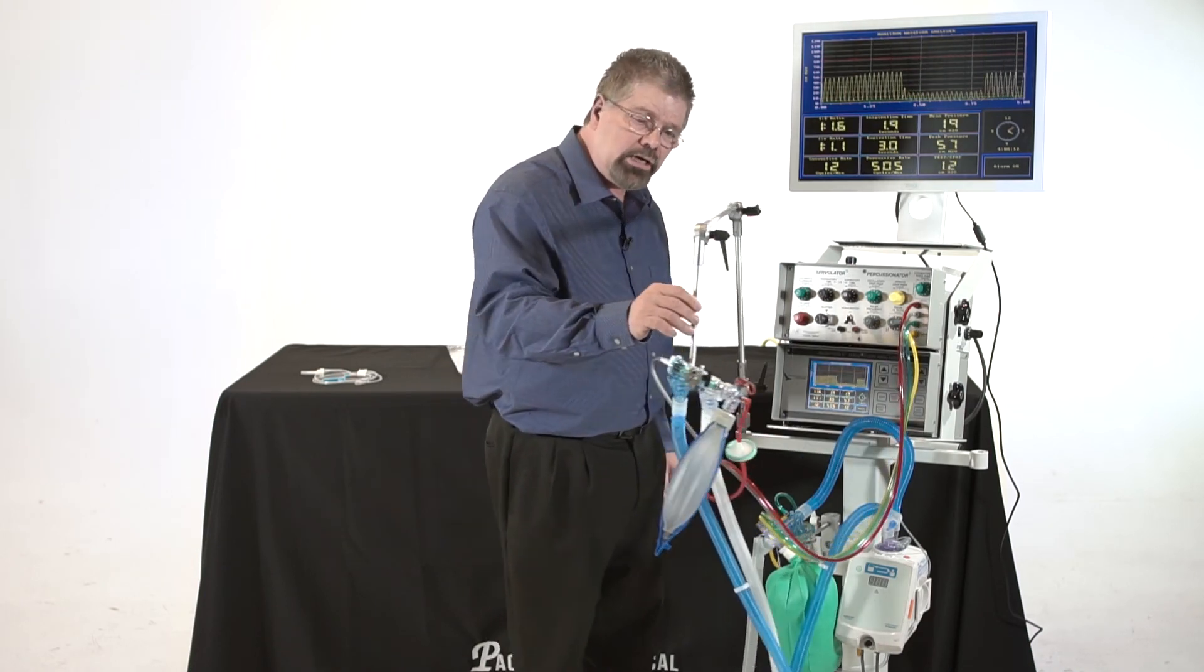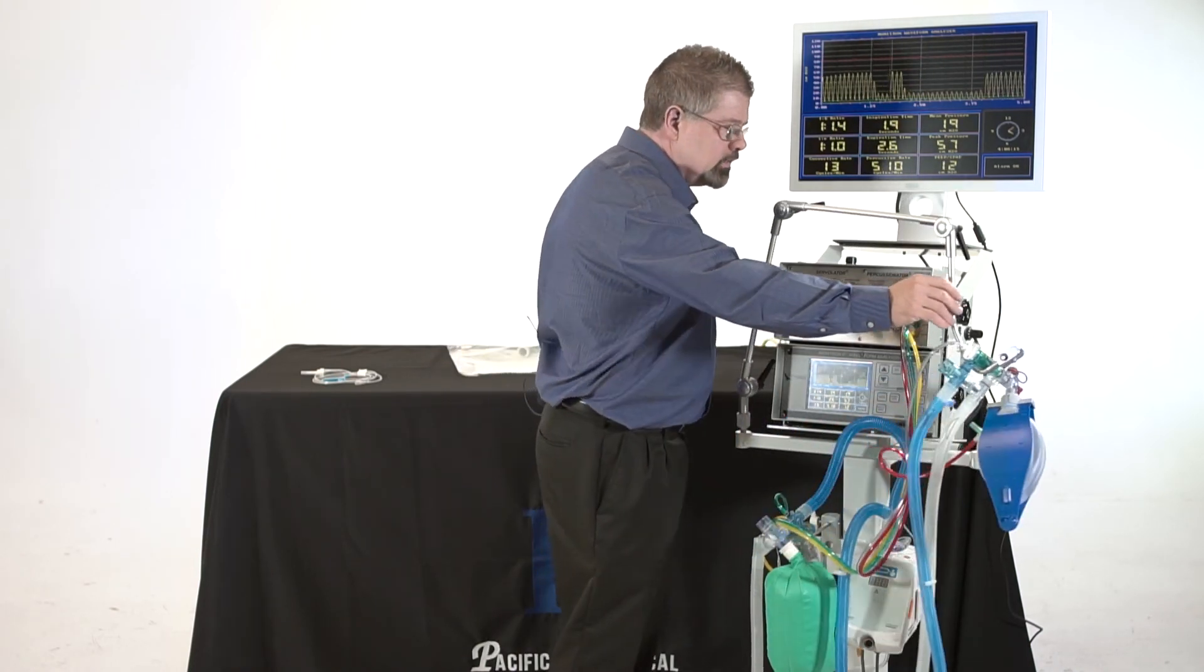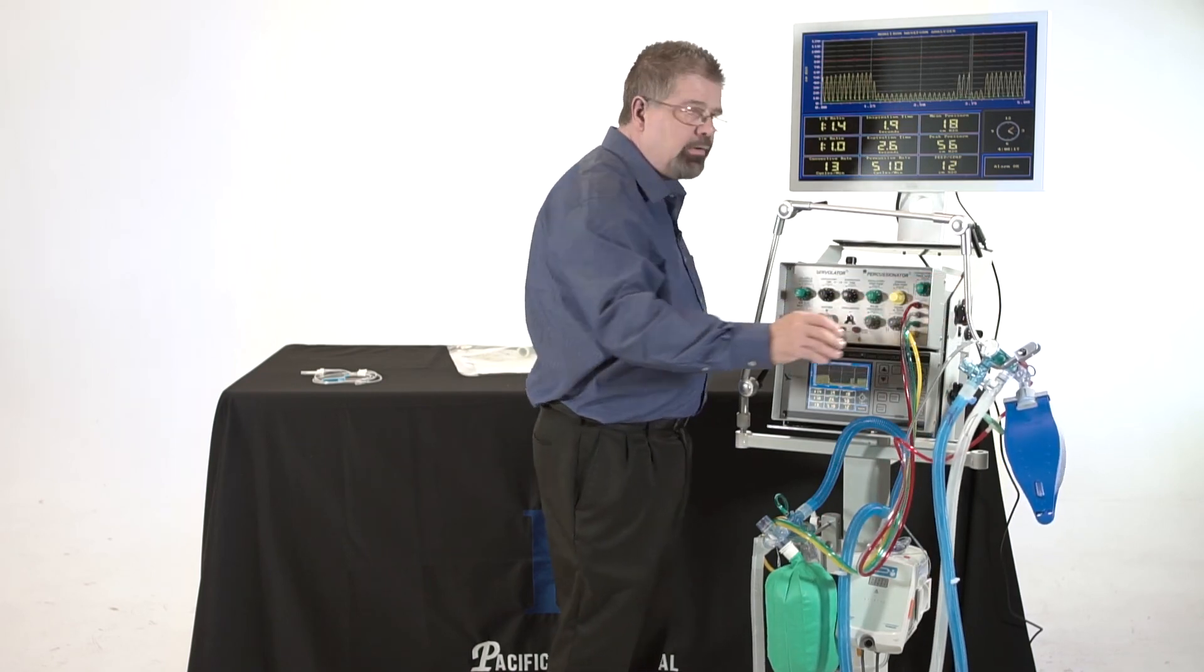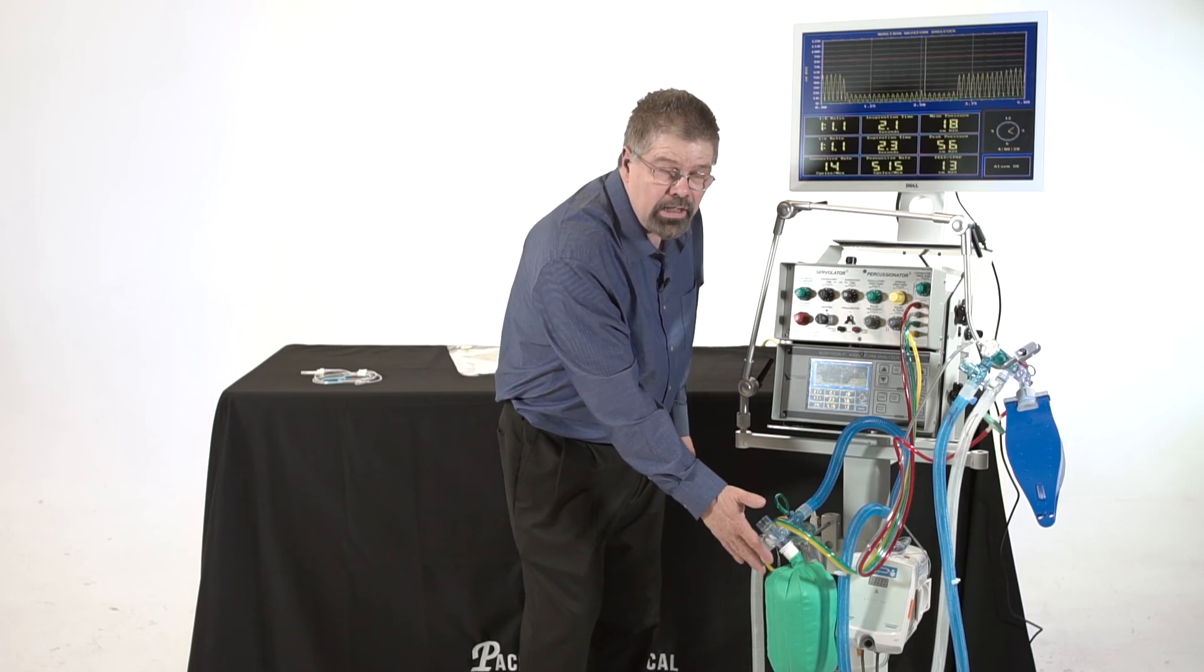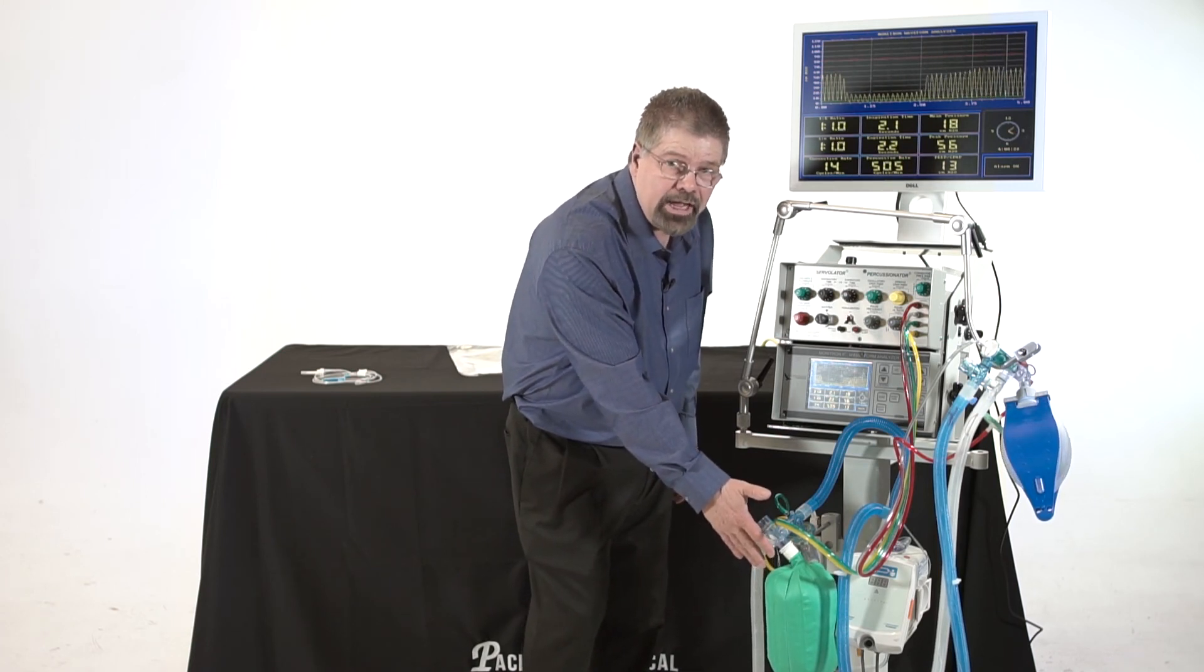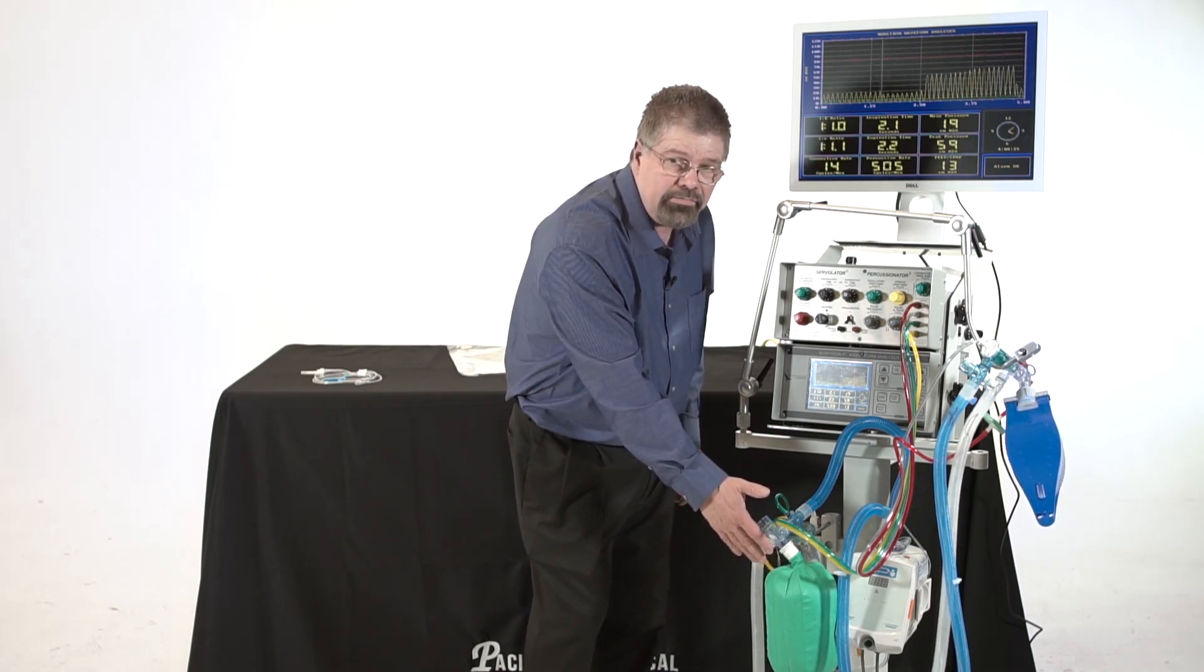We're going to slide this circuit over a little bit like this. I want to talk about the reservoir. Remember, this is the reservoir down here. This allows the patient to get extra flow through any cycle of ventilation.